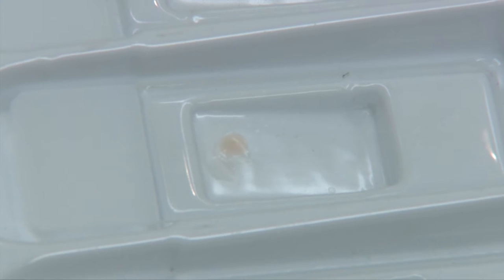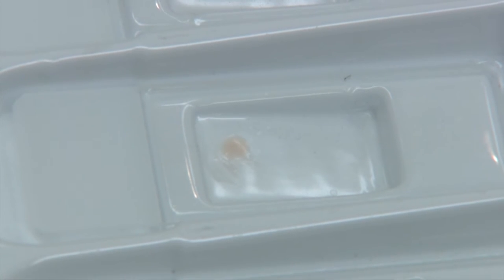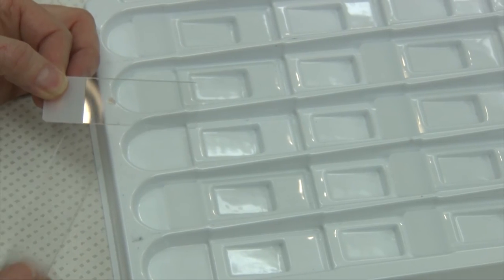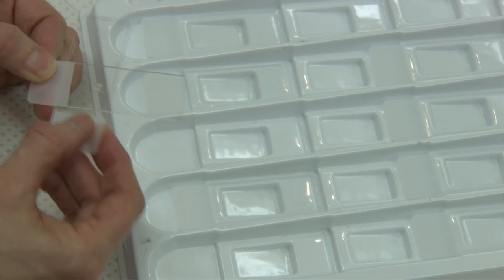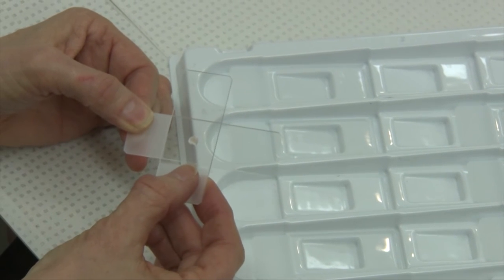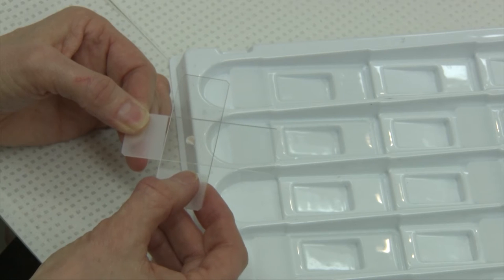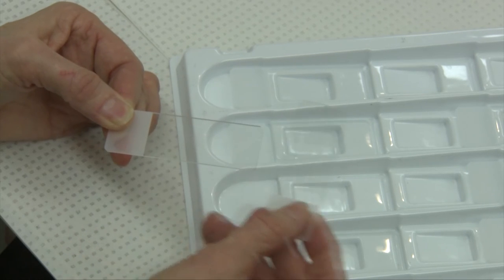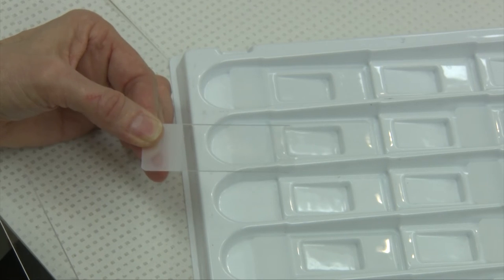The next step is to make your smear. Pick up the slide that contains the material — we have a drop of material near the frosted end. Pick up another slide and lay that slide at right angles over the smear that contains the material. Let that sit on the drop and then pull it across to make your cytologic smear.